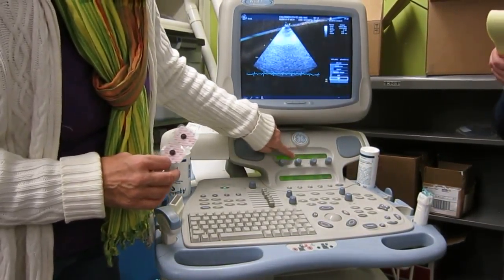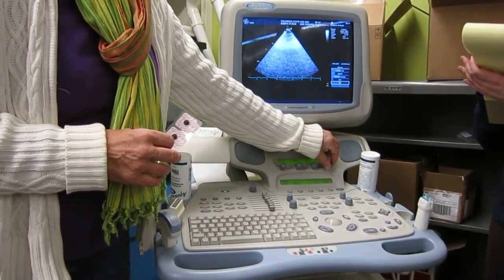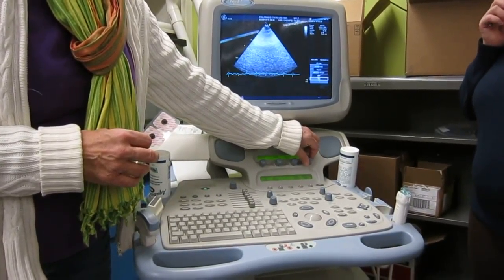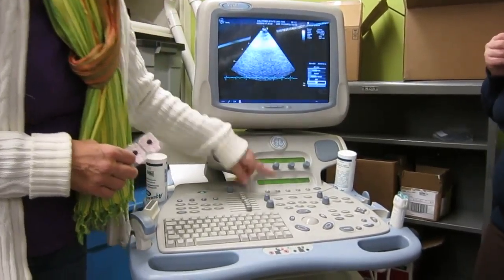And so that's on this green screen. You can actually adjust your frame rate right here. It's at the highest for this setting, and I can go down. I don't know what the purpose would be for going down, but up, down, left, right.